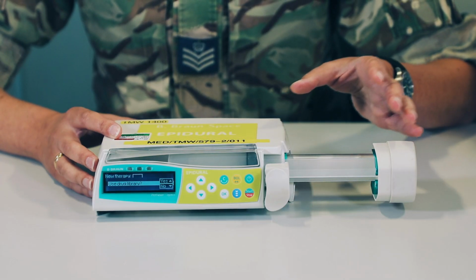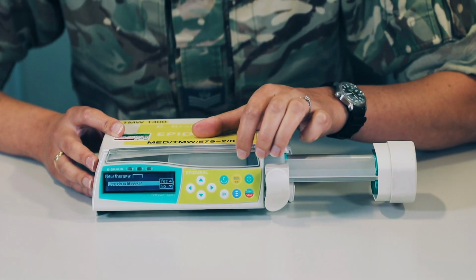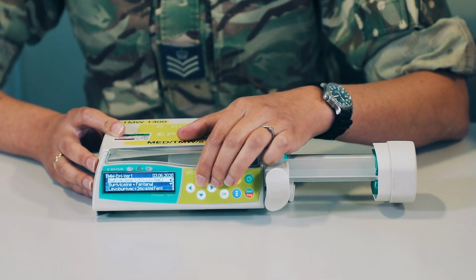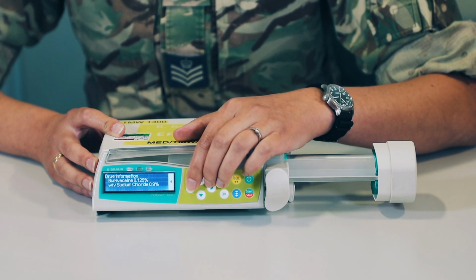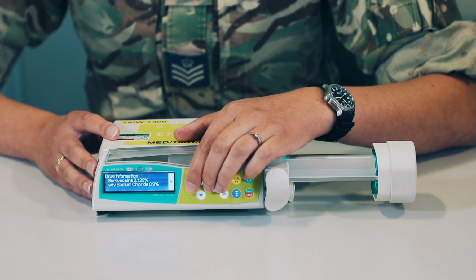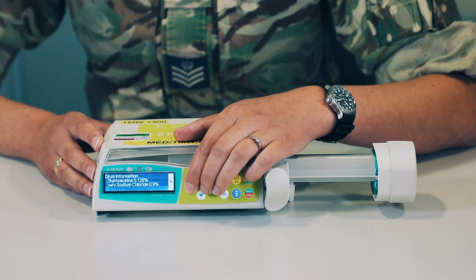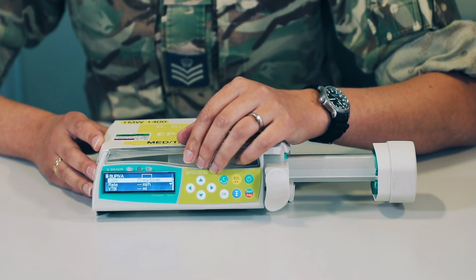Once the syringe arm has gripped your syringe, it will give you an option to go into the drug library. Just select yes for entering the drug library, and in here you'll notice that bupivacaine 0.125% is the first option. Press the arrow facing in towards the screen and it is going to ask you, in the same way as the PCA does, to confirm that this is definitely the drug that you want to use. So just make sure you confirm using this screen that you definitely want to use bupivacaine 0.125%. Press the arrow facing in towards the screen again and it now takes you through to the setup menu.